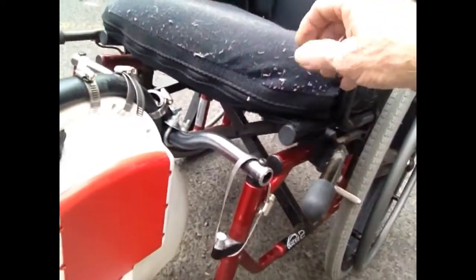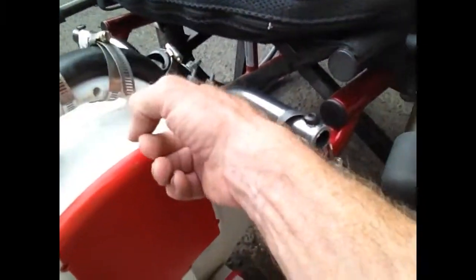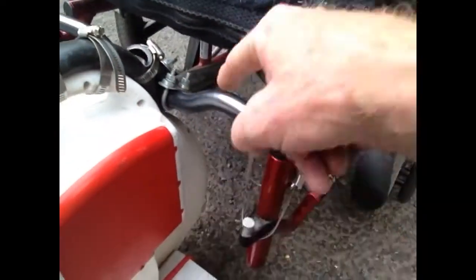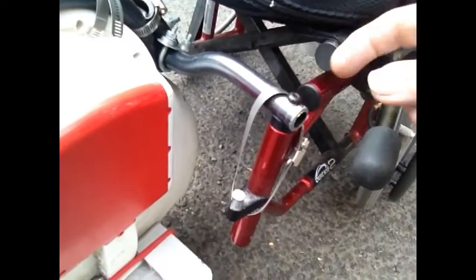With the hose brought down over here, I found a handlebar that went from side to side where I took off the footrests, and I had to cut it down so it wouldn't stick out too far.